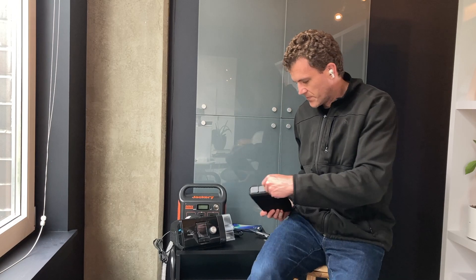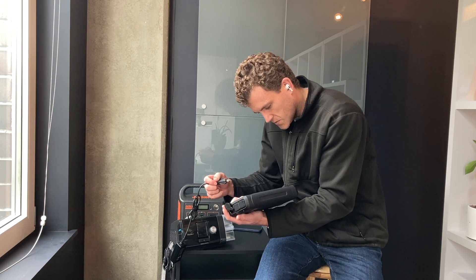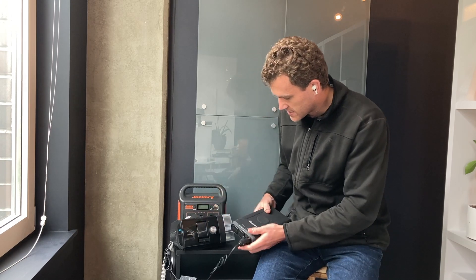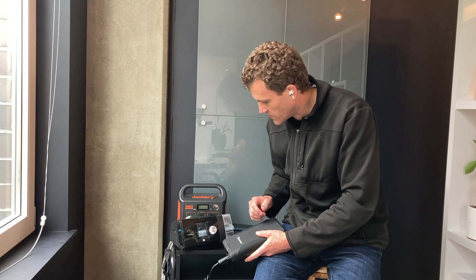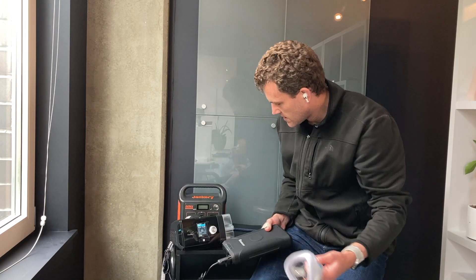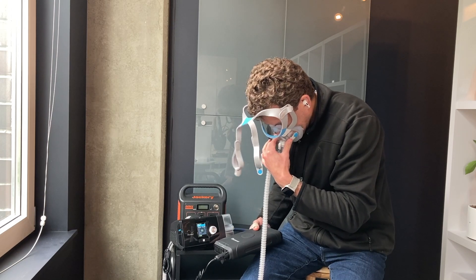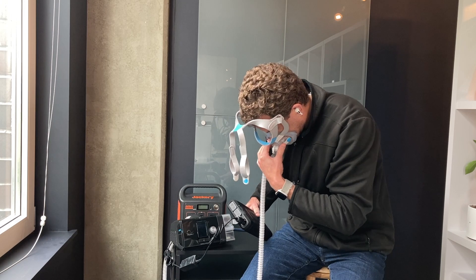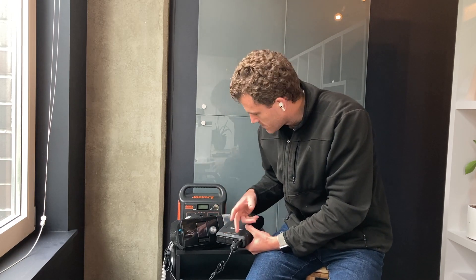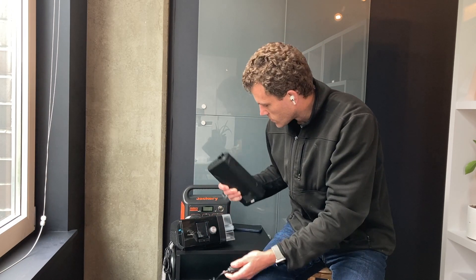What we're going to be doing is testing this for the CPAP. It's got 266 watt-hours, so that's going to get you at least 10 hours on most CPAP devices. This one I've tested on DC power usually runs about 20 watts. Let's just start it up. Okay, doesn't seem to have any problems. You don't get a wattage output reading like you would connecting it to the Jackery 240, but it works well enough.